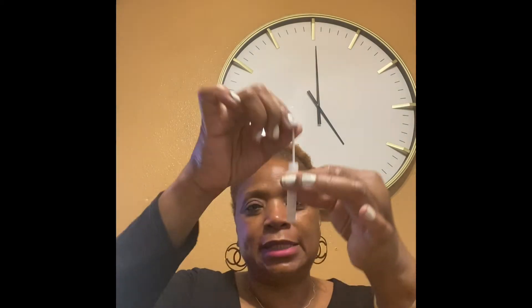You squeeze all of the contents in there — it's the liquid and it's filled up to about right here. This is the top that goes on, so I'm going to place the top back on it until I get my sample. Once you get your sample, you put it inside of the little tube and you swirl it around at least about 15 times, just to make sure that the sample gets mixed in the solution.